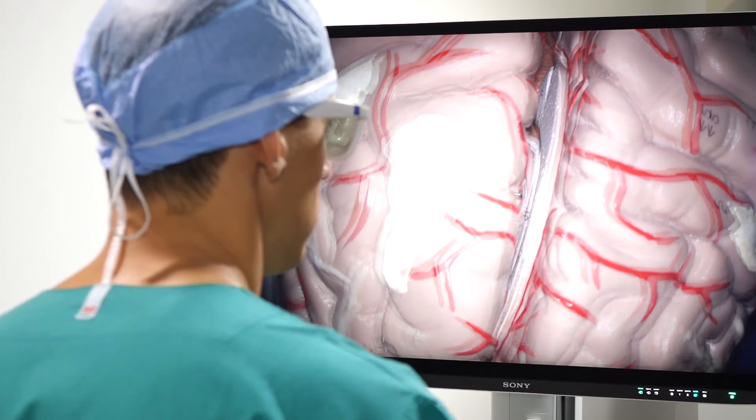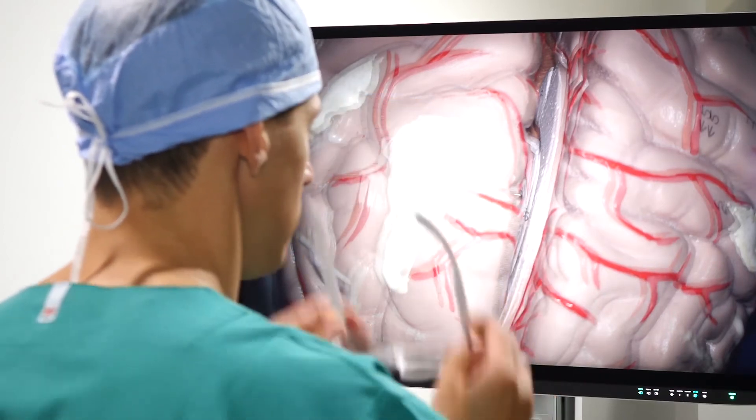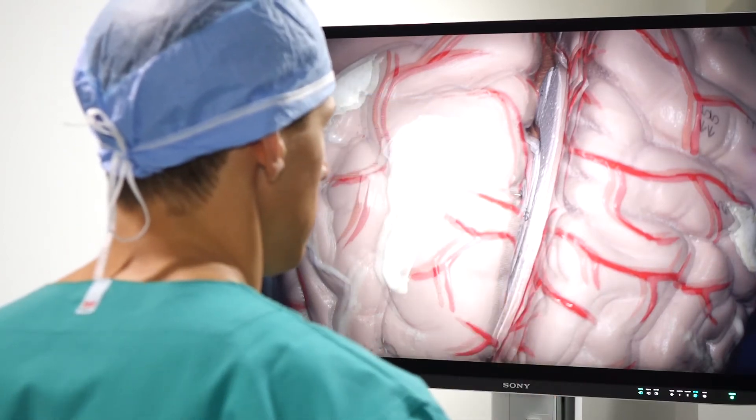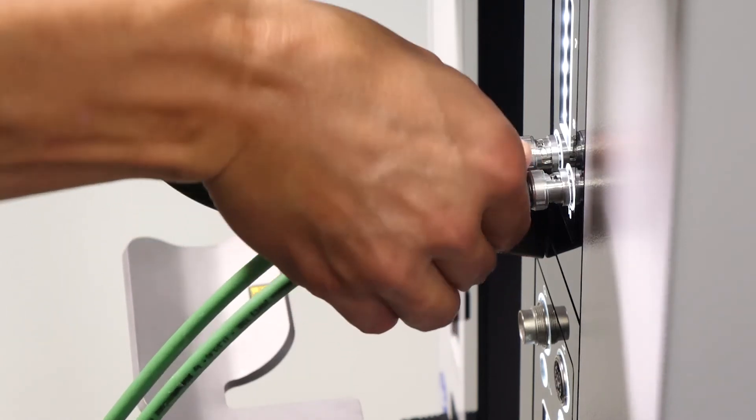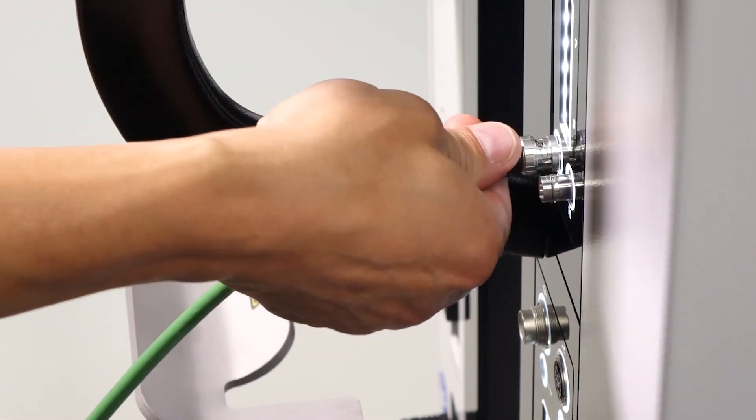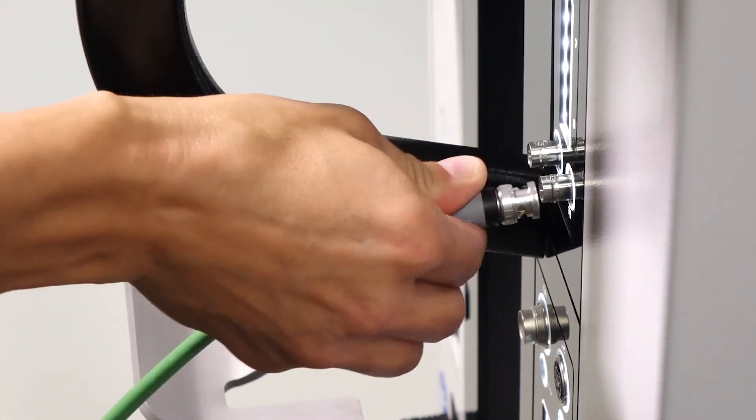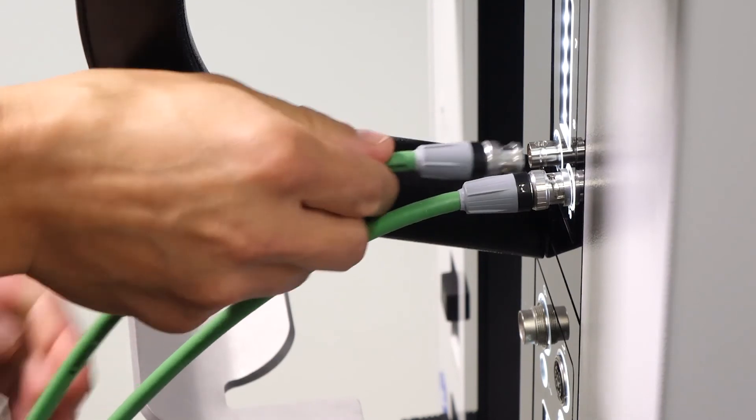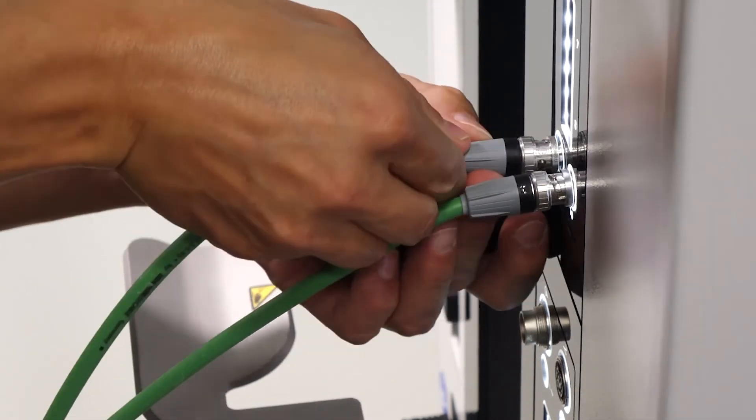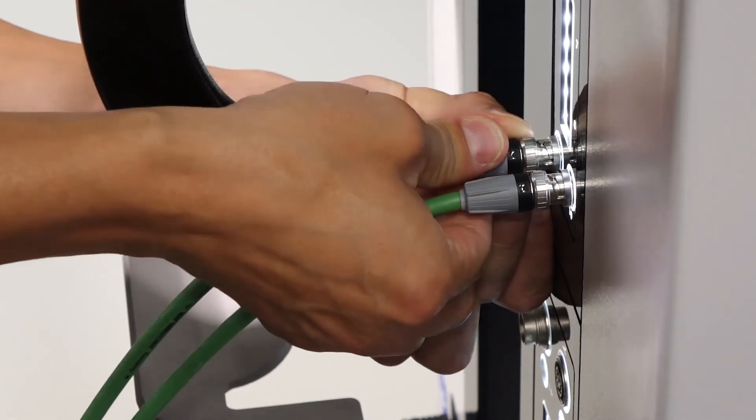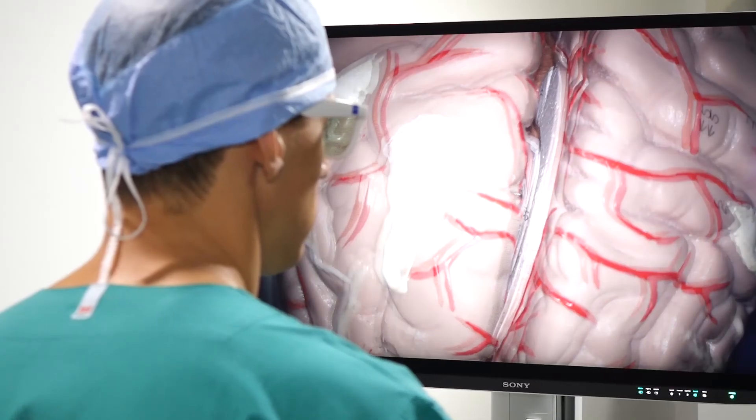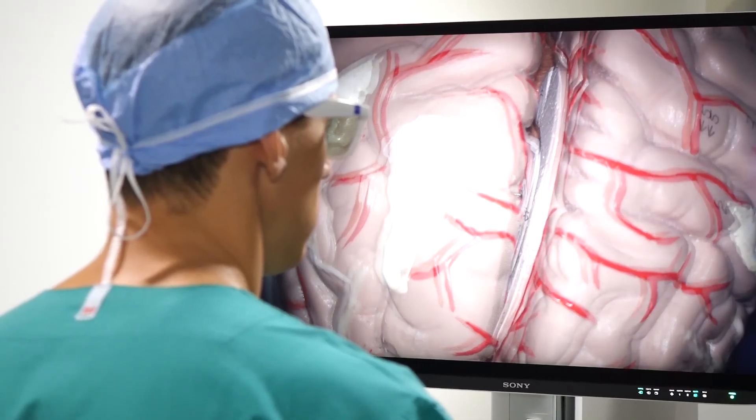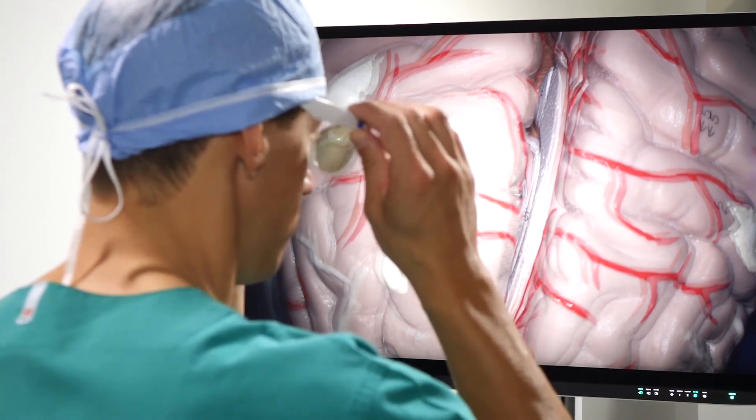If the image appears to be dark and unclear, you should correct the orientation by swapping the two HD-SDI cables. Simply exchange the cable in output sockets 9 and 10 to switch the input coming from the left and right cameras in Zeiss Kinevo 900. Verify again to ensure a crystal clear image displayed on the monitor.